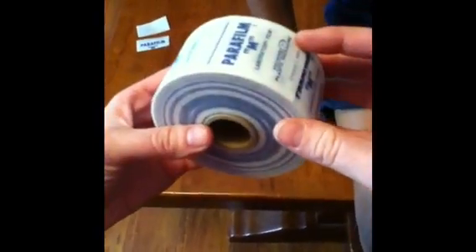Hello everyone. Today I'm going to talk about how we protect Marissa's central line and a little bit about parafilm. Parafilm comes on a roll like this. It's paraffin wax and they use it in the laboratory to cover beakers and tubes, that sort of thing. Because of what it's made out of, it doesn't have any kind of adhesive and no germs or anything are going to grow on it. That's what makes it nice to use on a central line.